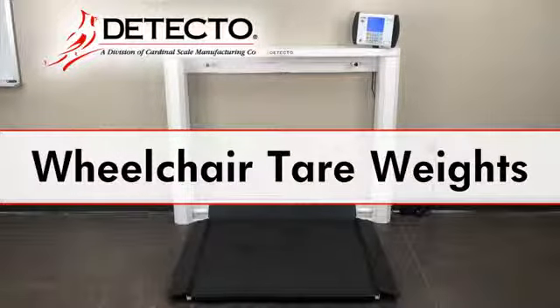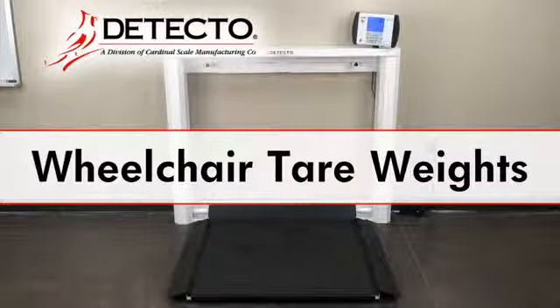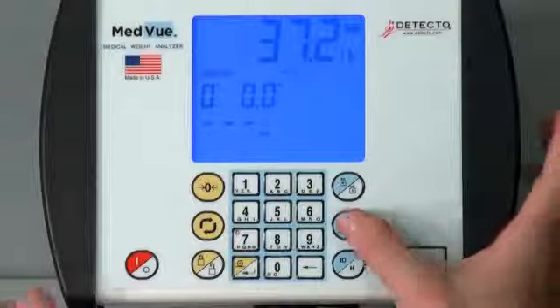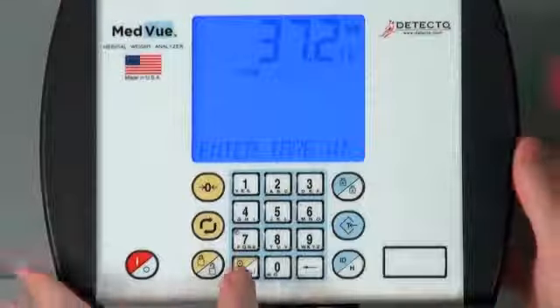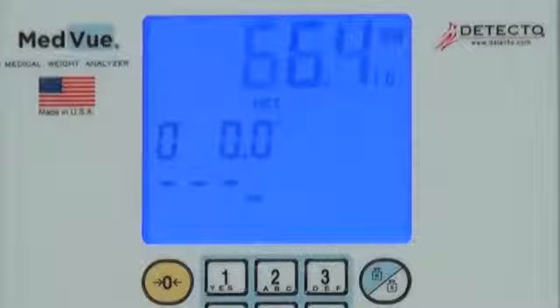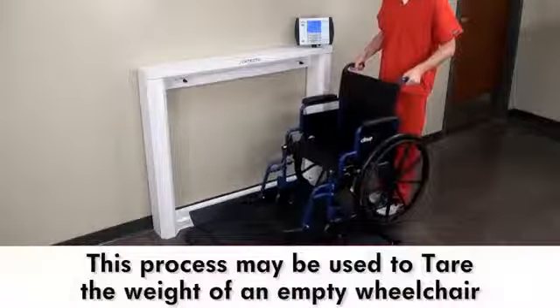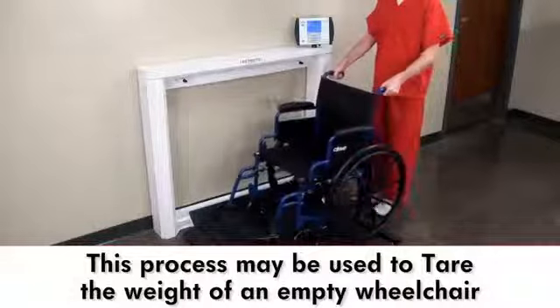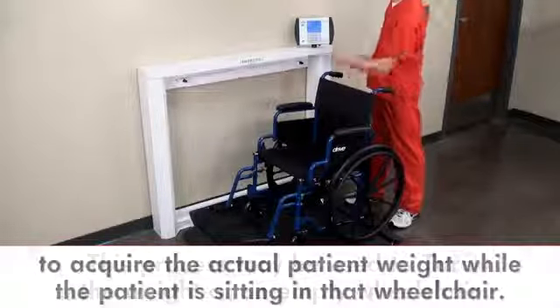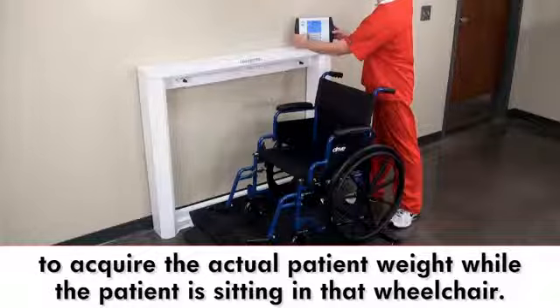The 7550 Wheelchair Scale offers multiple ways to tare the weight of an object. The tare process removes the weight of that object from the gross weight, leaving you with the desired net weight. For example, this process may be used to tare the weight of an empty wheelchair to acquire the actual weight of a patient while sitting in that wheelchair.